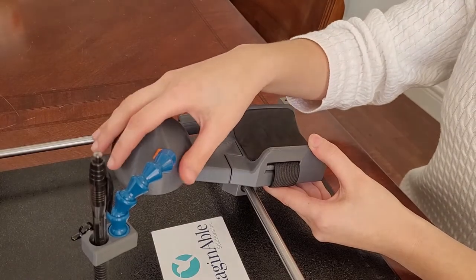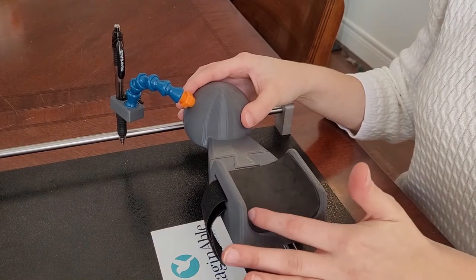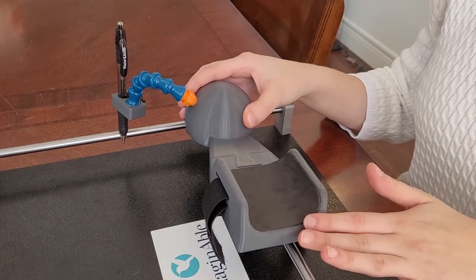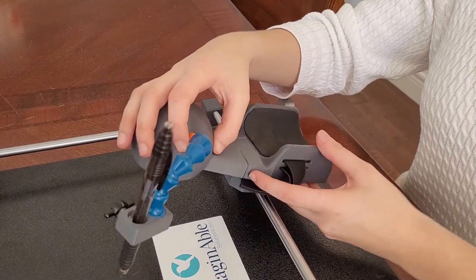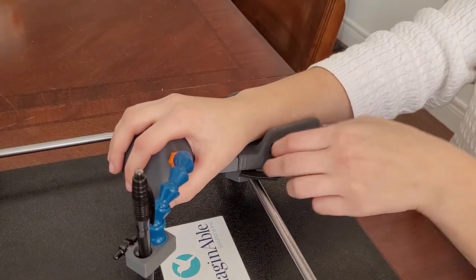Our handpiece is connected to the wrist rest, which is ergonomically designed to have a curvature to fit your forearm. The surface is also layered with a foam padding for comfort. Grasp the handpiece and rest your wrist on the padding and secure it with the two Velcro wrist straps.